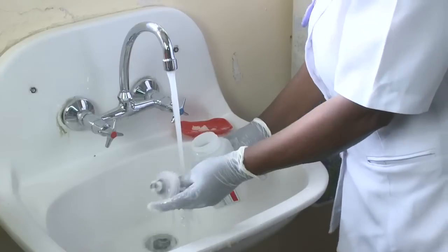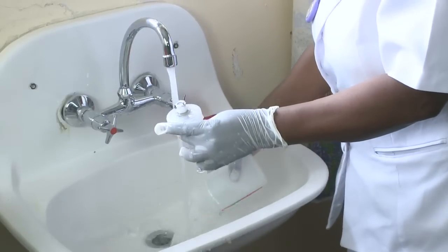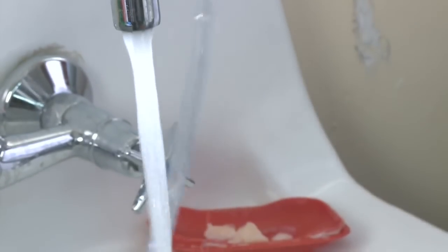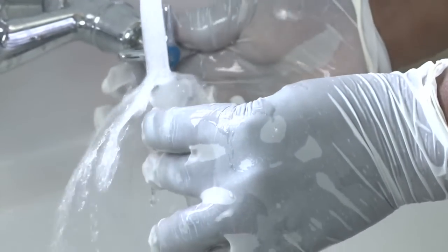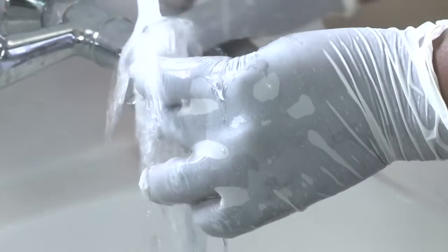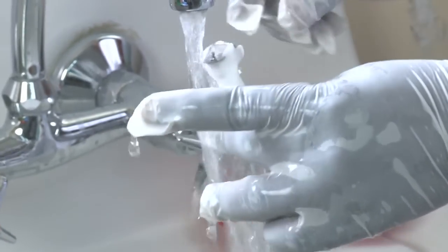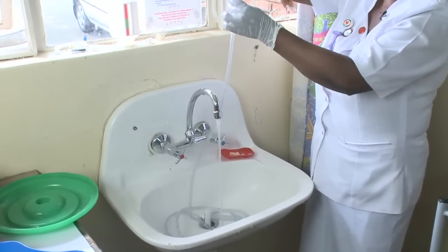After leaving for 10 minutes, take everything to a tap. It needs to be rinsed thoroughly to get rid of the chlorine. Make sure there is water going around the tube, and run water through the middle of the tubes to ensure the water runs all over the tube.